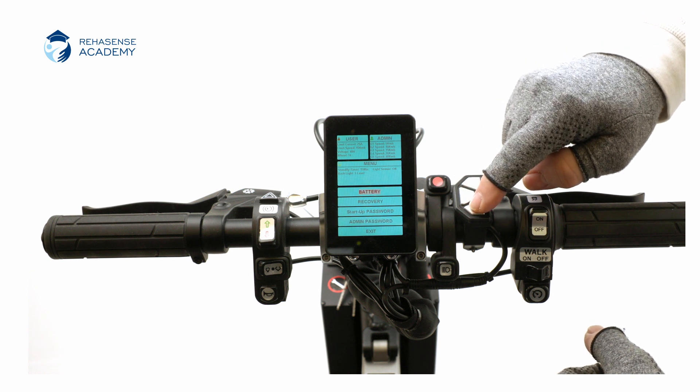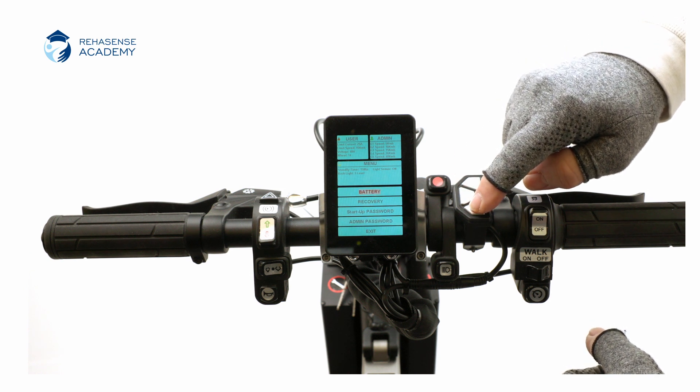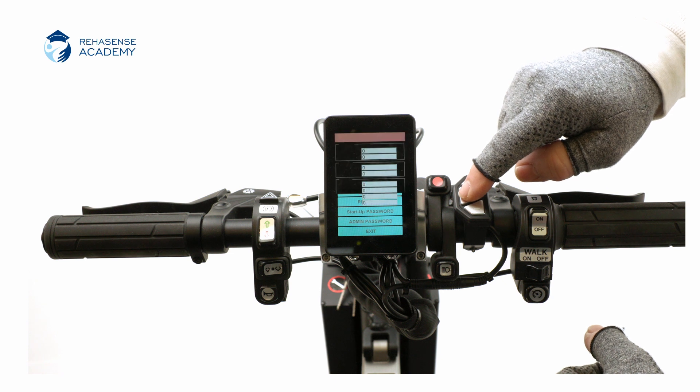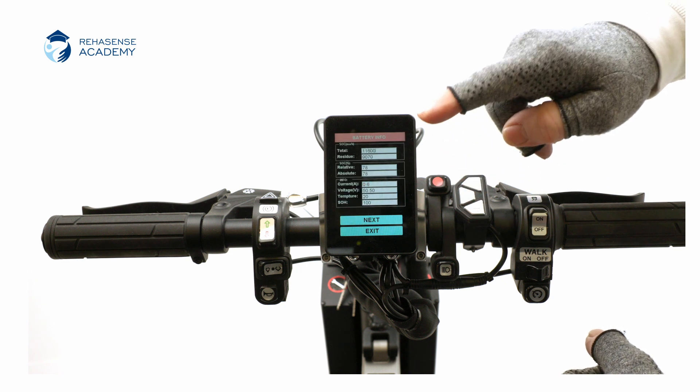The battery page is for information only and shows different battery parameters.